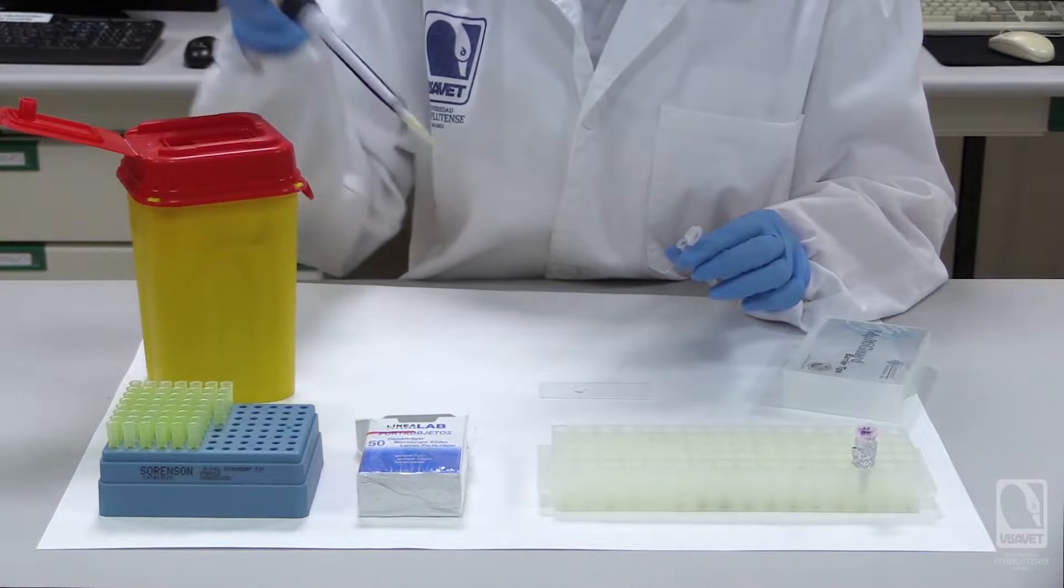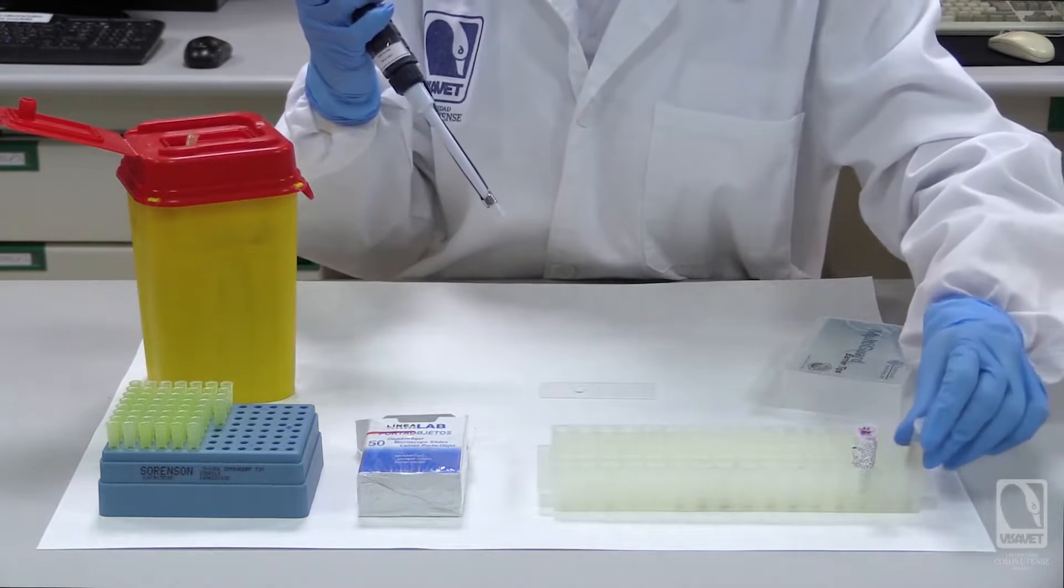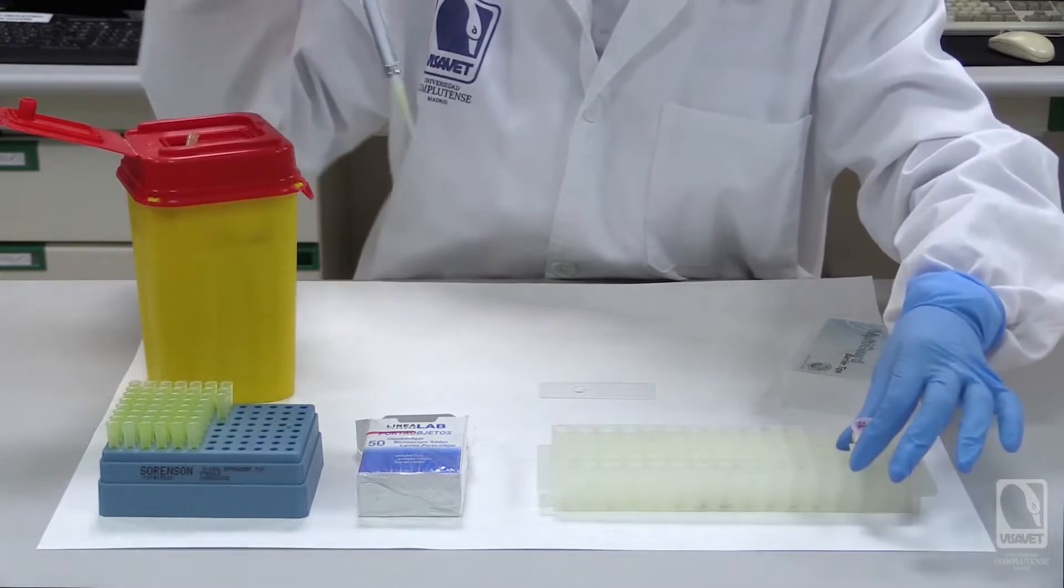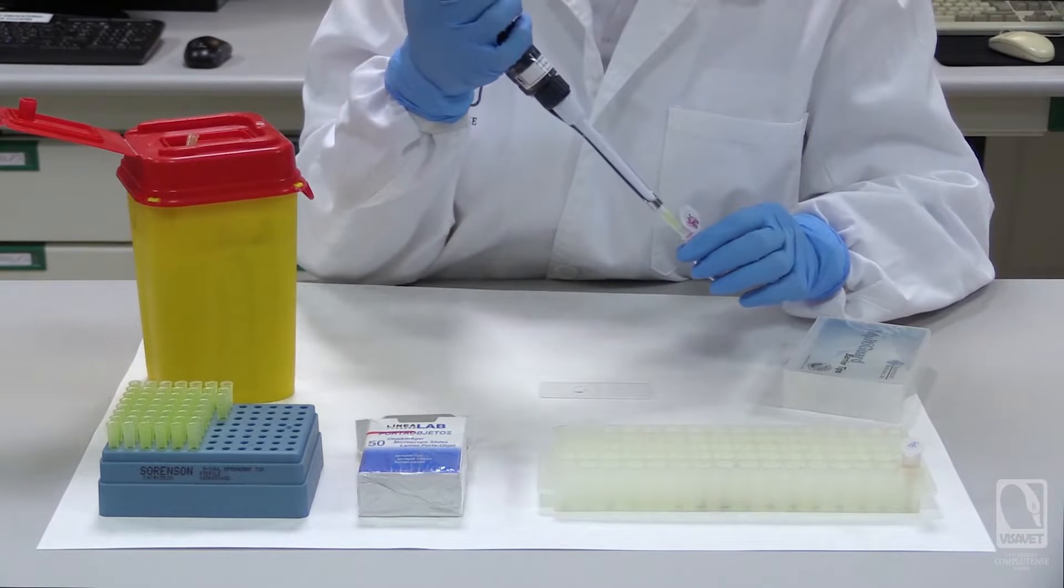Following this, we will deposit an equivalent volume of 30 microliters of our antigen, composed of inactivated Brucella bacteria stained with Rose-Bengal dye. The name of this dye gives the technique its designation and assists us in observing the reaction, as we will delineate imminently.